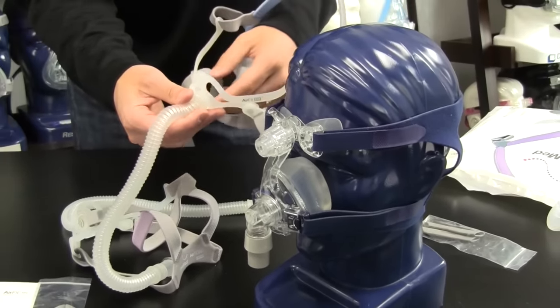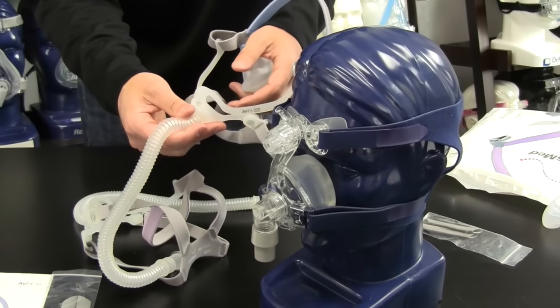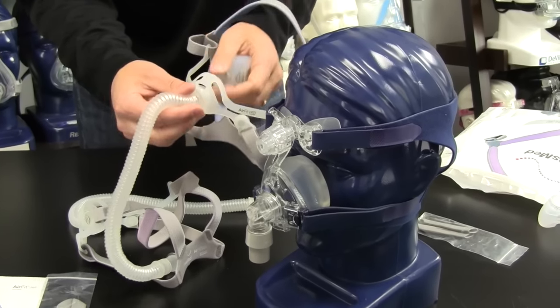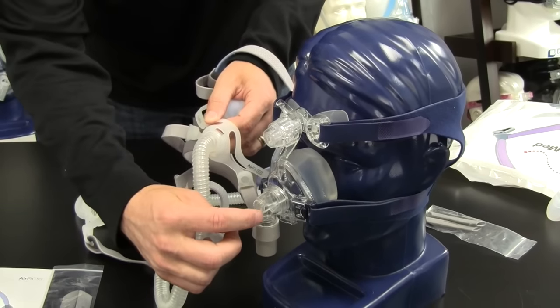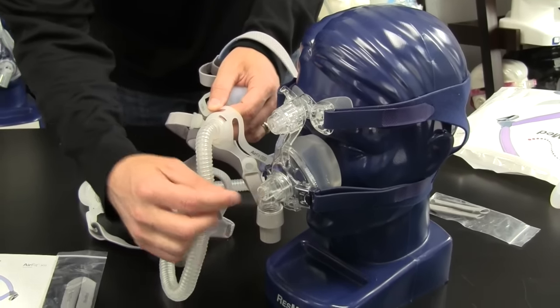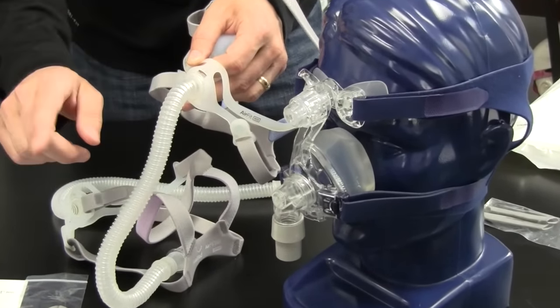So all in all, if you're needing to upgrade your mask and you want something that's going to stay on your face better, less claustrophobic feeling, quieter design. They have this circular vent design here. As opposed to here, it's a very small little space. This is much wider. The air is dispersed really nicely as you're breathing out and exhaling.